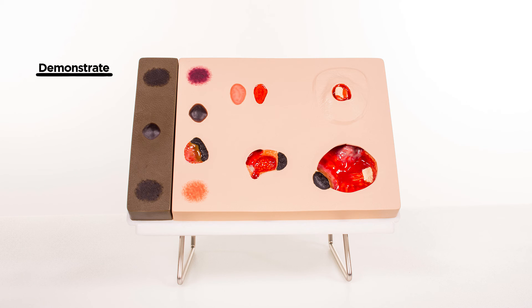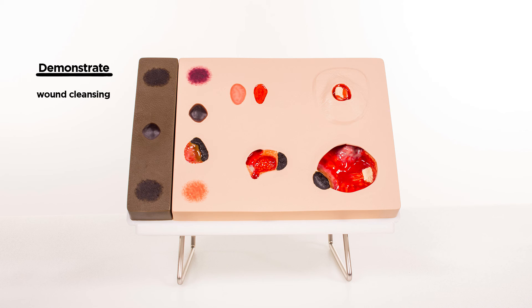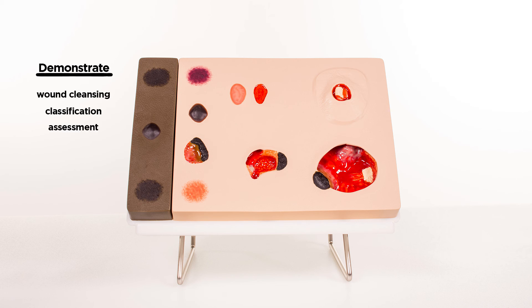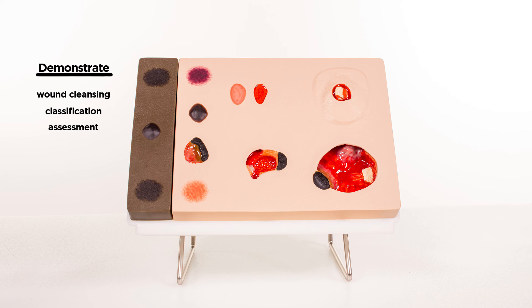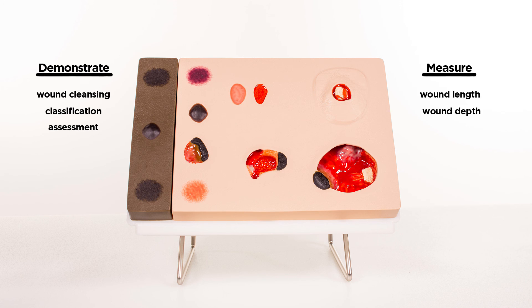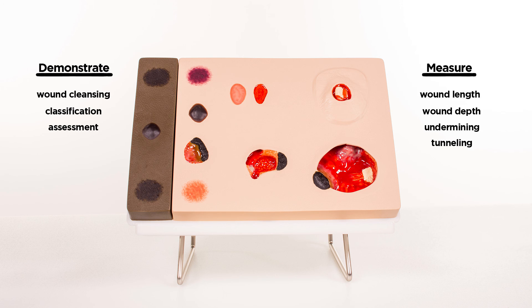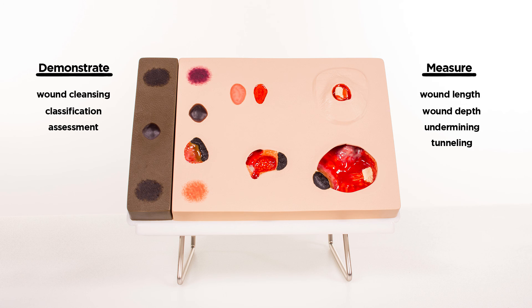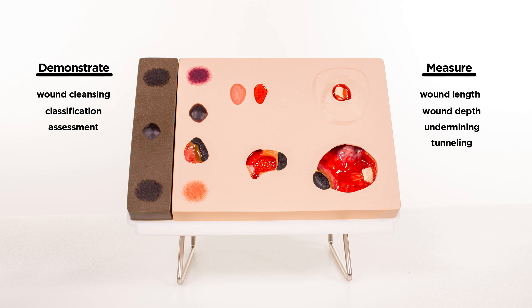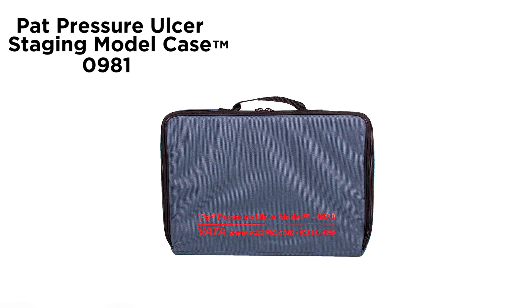You are able to demonstrate and practice wound cleansing, classification and assessment, as well as the measurement of wound length, depth, undermining and tunneling — a great teaching tool for health care professionals. An optional carrying case, model 0981, is available.